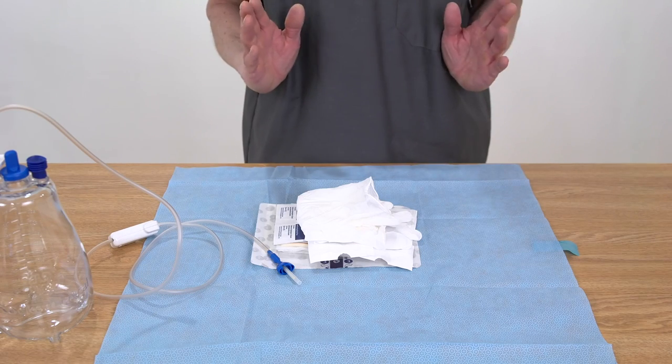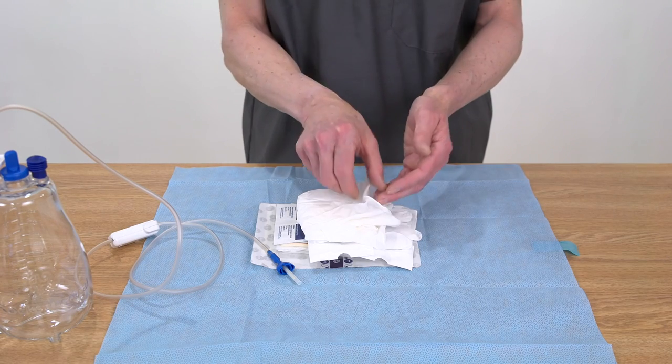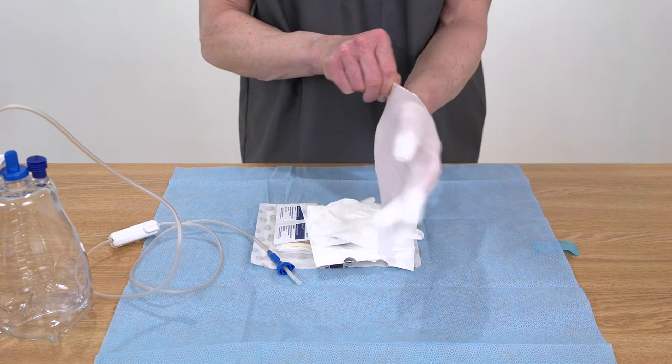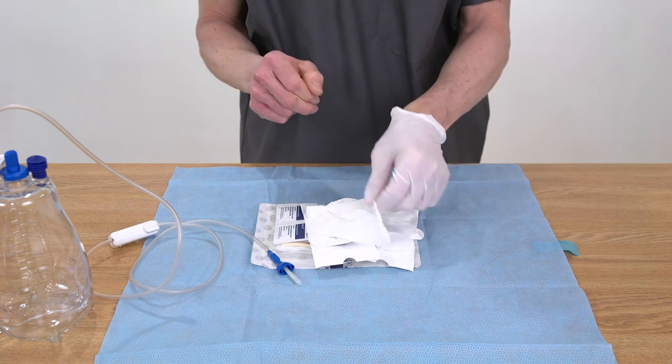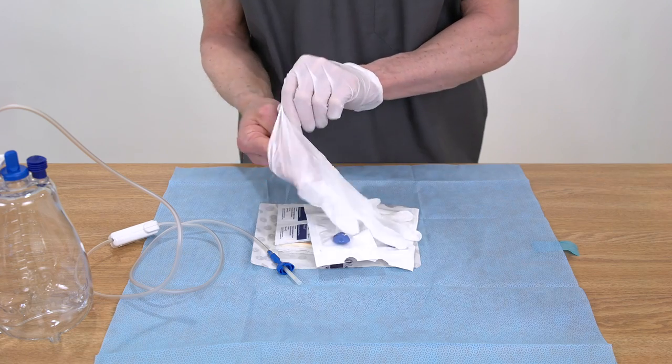Next, put on the gloves, being careful not to touch the outside of the gloves. Pick up one glove by the inside of the wrist and place it on the opposite hand. Then repeat for your other hand.